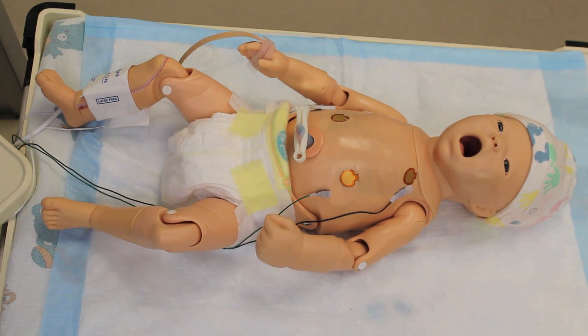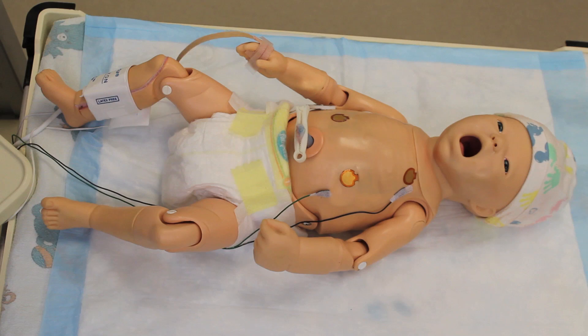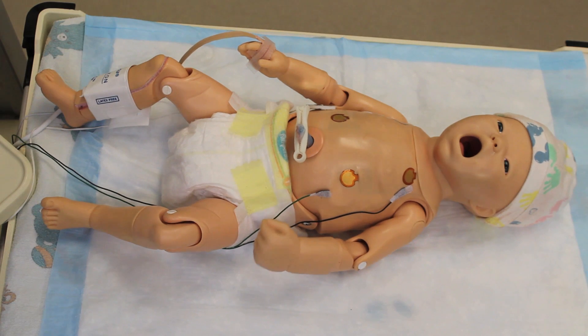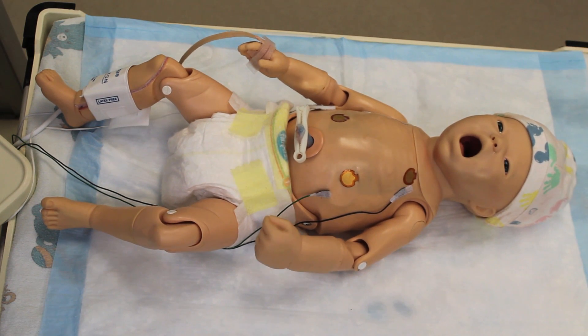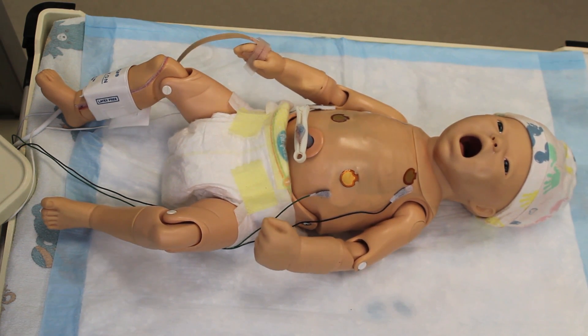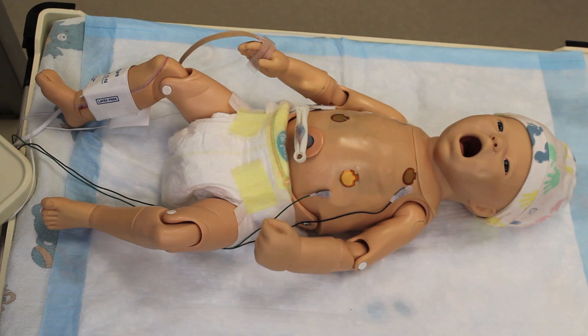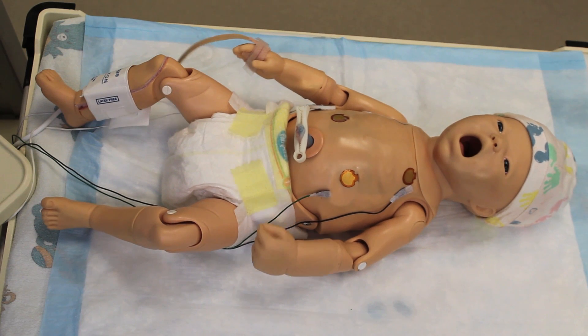You'll notice on his vital signs that his heart rate has come down and he's desaturated a little bit. The movement you see right now is called jitteriness, and we use this movement when we're trying to have you think about hypoglycemia, hypocalcemia, or drug withdrawal.